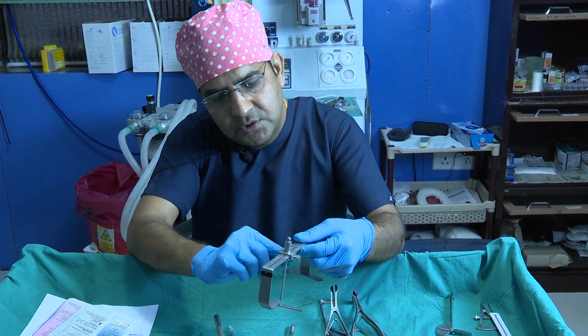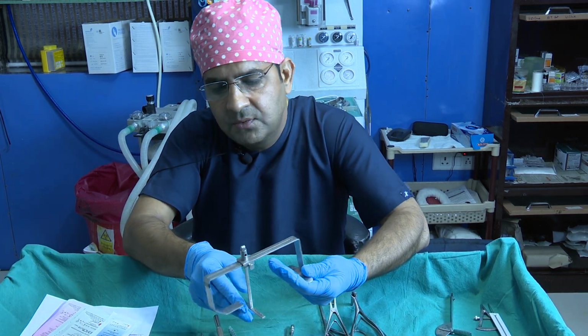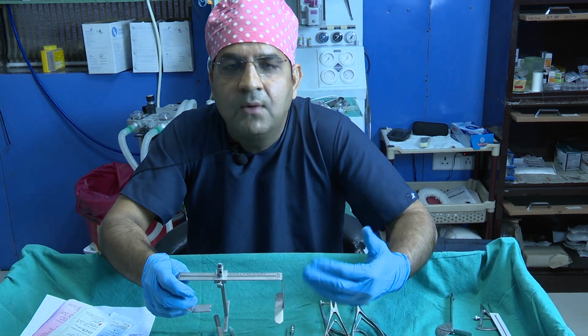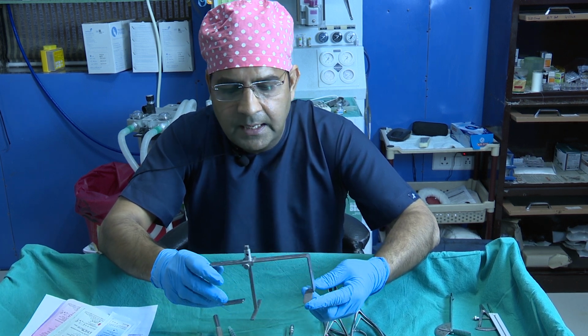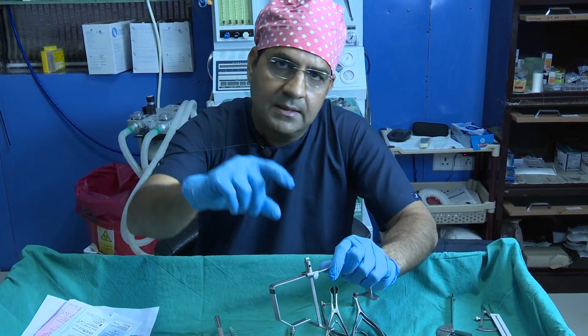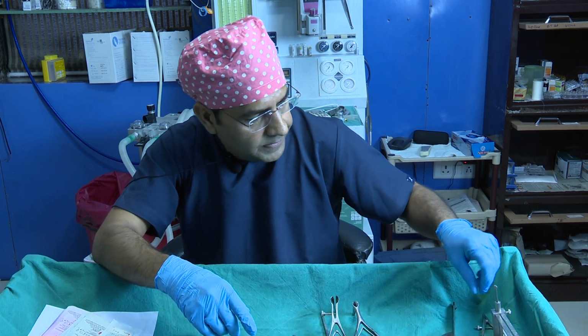So this instrument, you just put on the glabella, and we will show it in the live cases. This is a good instrument if you want exact, precise projections, because sometimes my junior colleagues ask how we can get the exact precise projection. This instrument is usually used by Dr. Vitali, and he uses it very precisely. So pre-operatively you measure your projections, and then post-operatively after you place the graft, you can check whatever amount of projection you have increased or decreased. So this instrument is used for that.